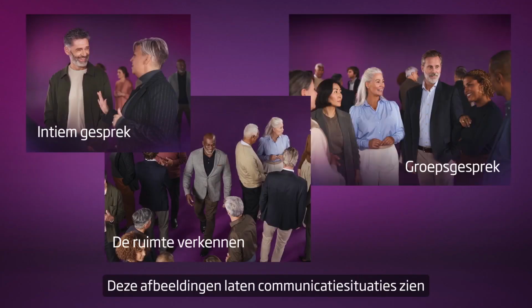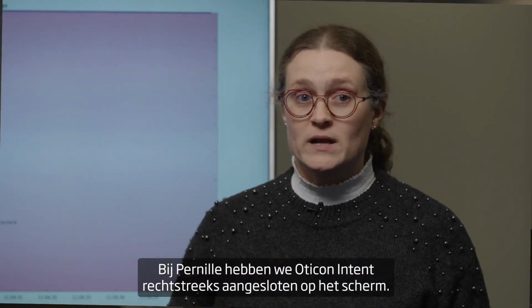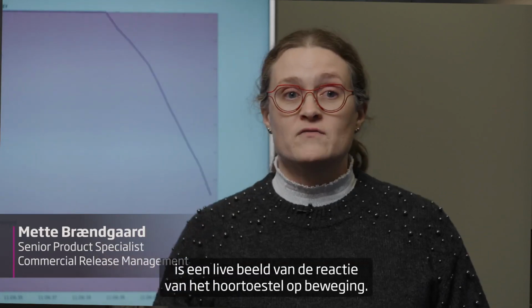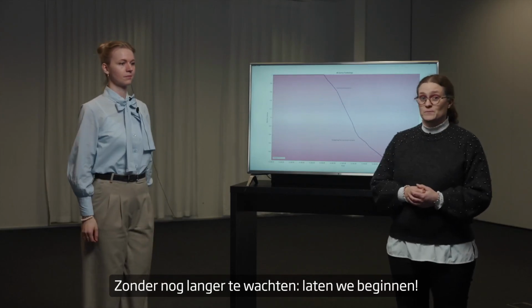These pictures illustrate communication situations that the hearing aid user might find themselves in. On Pernille, we've mounted Oticon Intent directly connected to the screen. So what you will see here on the screen is a live caption of the hearing aid's reaction to movement. With no further ado, let's begin.